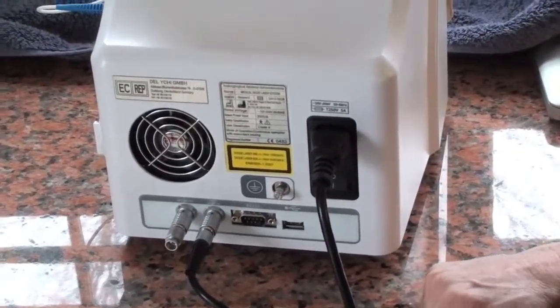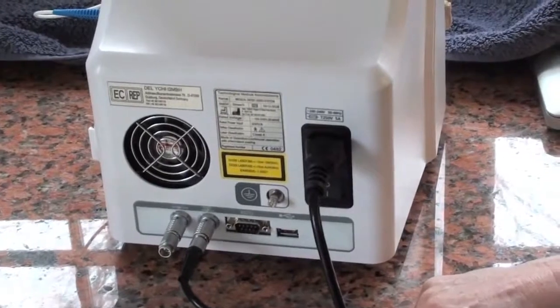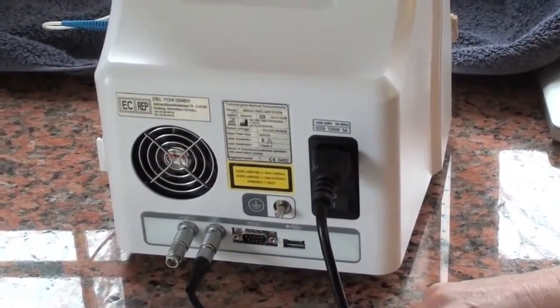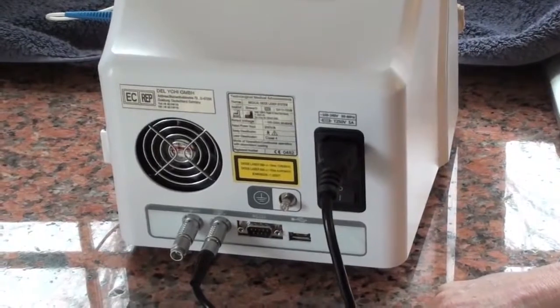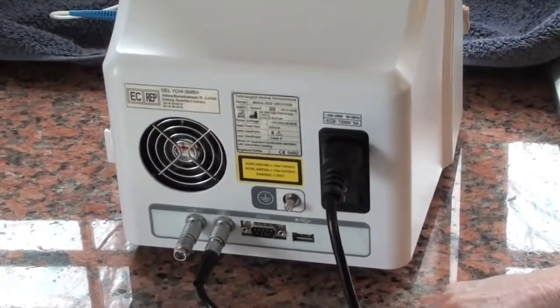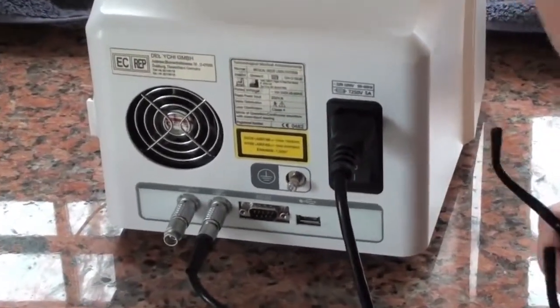Today we're going to show you how to set it up, how to program it, go over all the internal features, and show you some precautions in using the laser.